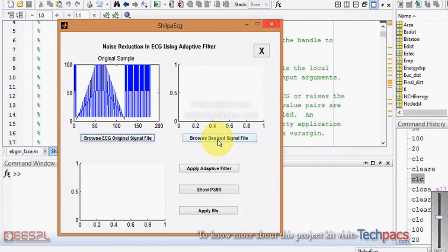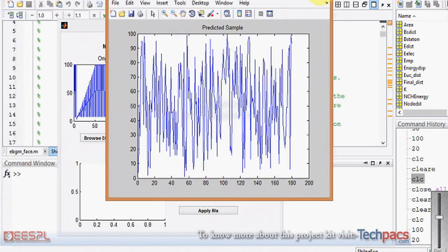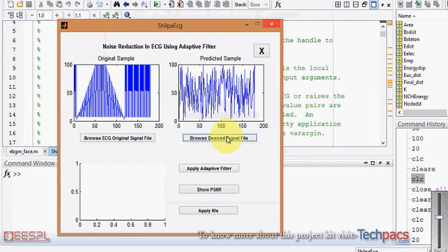As part of the adaptive filtration process, it is mandatory that you have the desired signal along with you — indicating how much noise is tolerable. So I'm clicking on the predicted sample, which is the desired signal file.